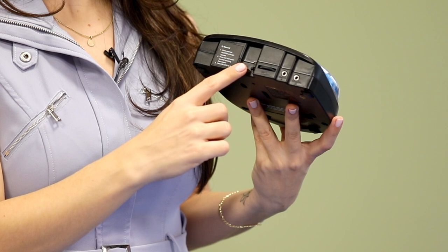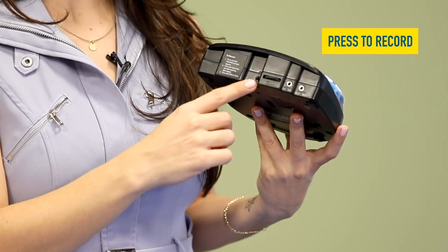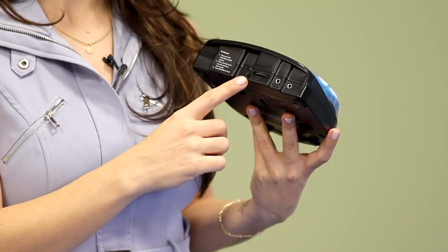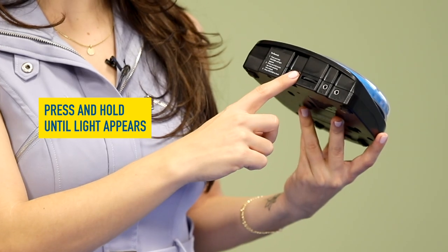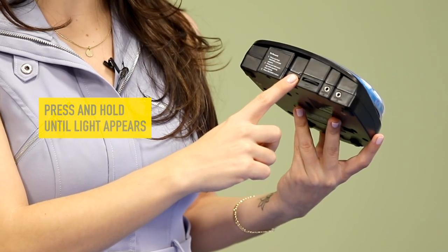To the left of that dial, there is a button. This is where we will press to record. To start recording your message, press and hold that button until the red light appears.